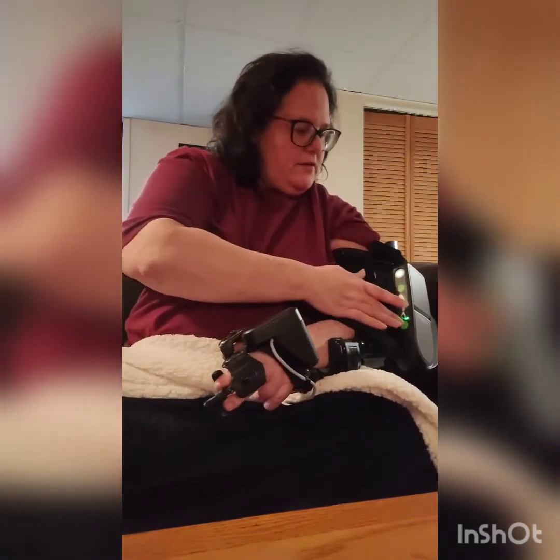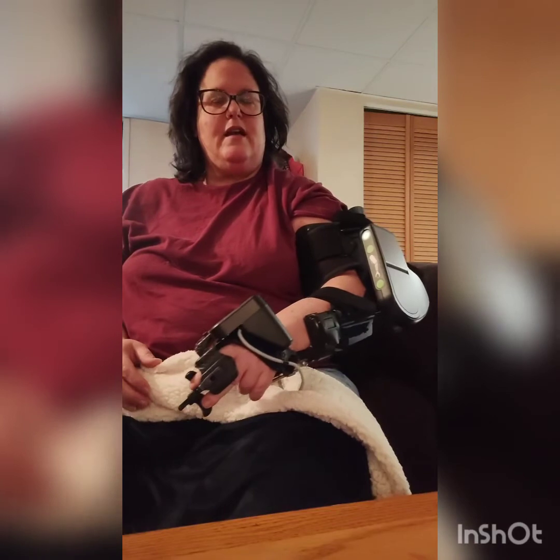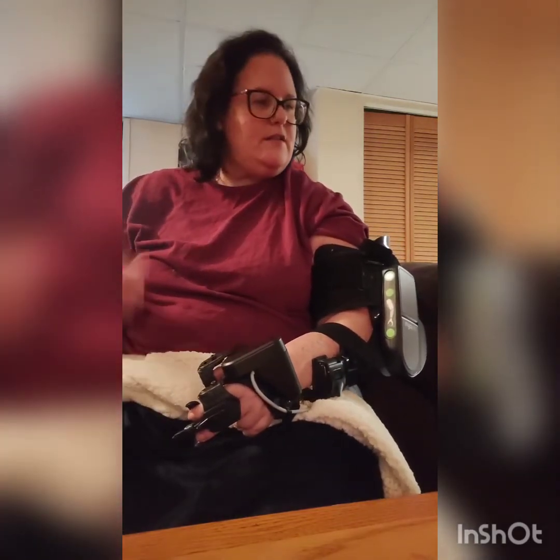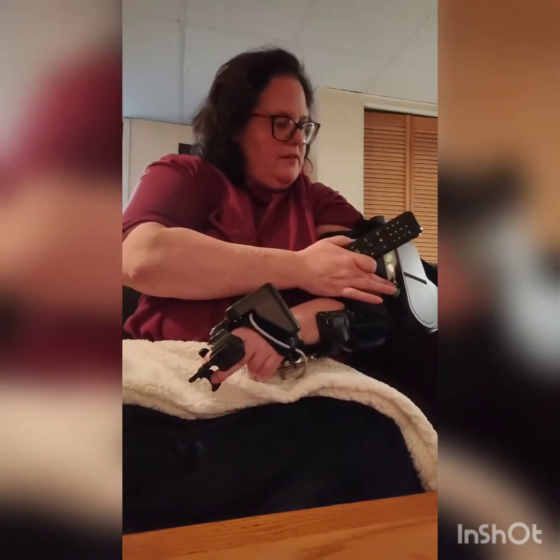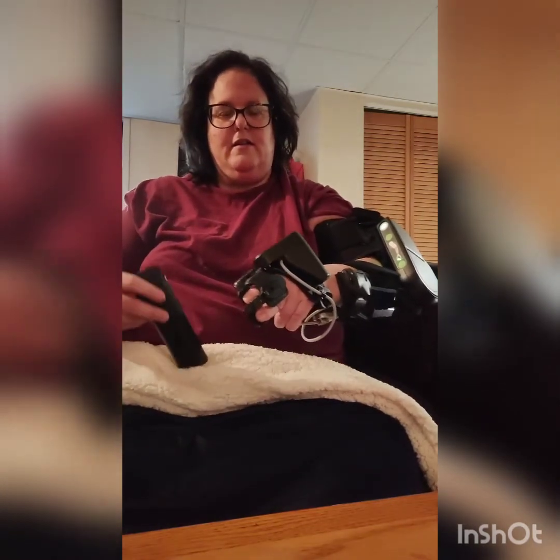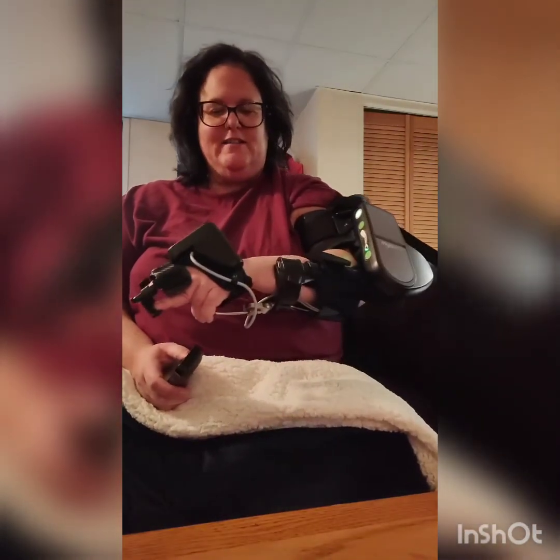So I really thought that you would put this thing on and it would just work for you. But lo and behold, you actually have to learn to use it and practice and it's a process. So as much as I wanted to just go and start grabbing things, I am going to try to pick this up — or grab it anyway. Like that. And I'm going to close. Look at that, I'm holding it! And it dropped. So little by little, I'll get it.